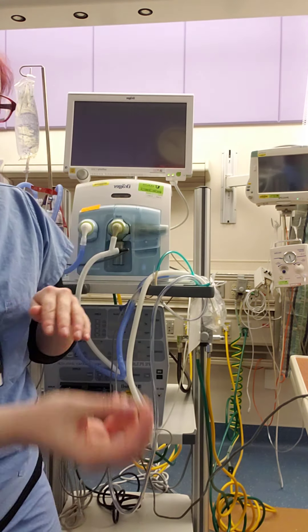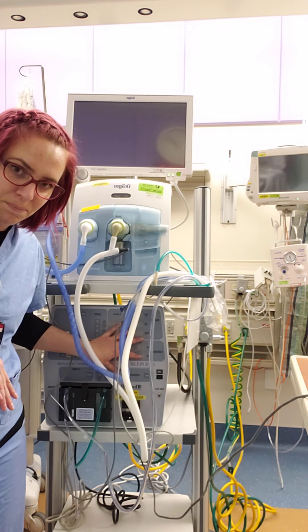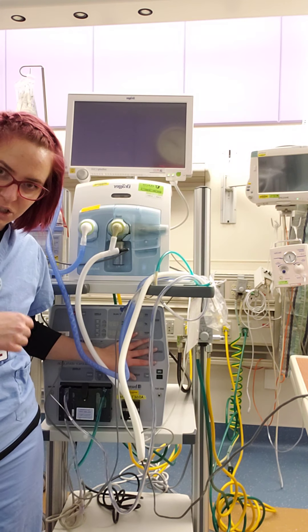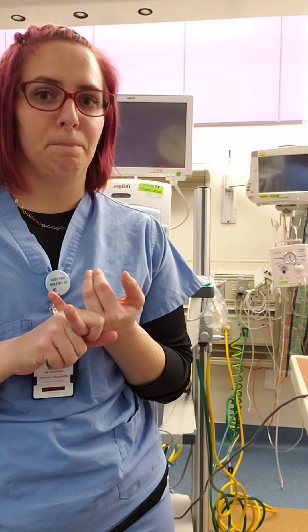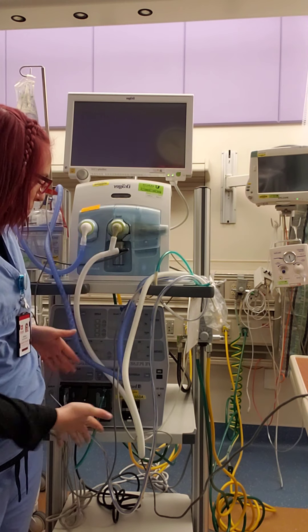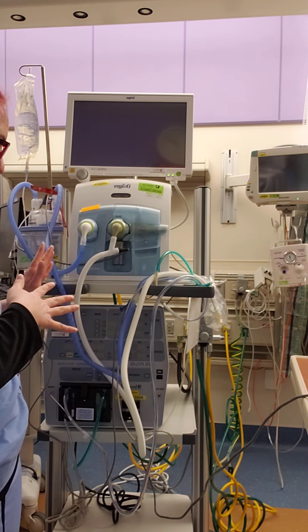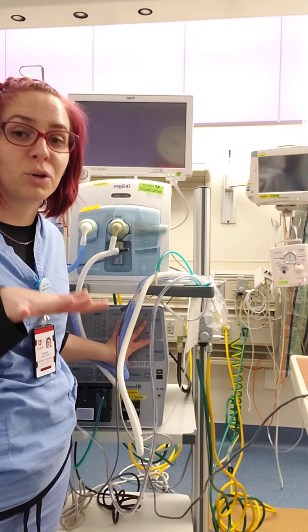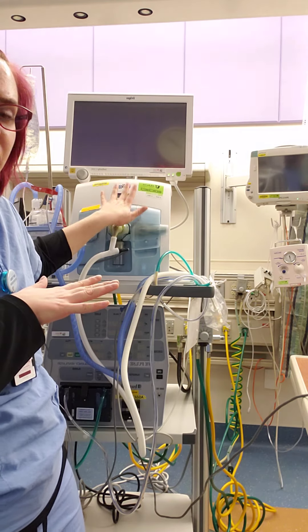First things first — the Bunnell jet ventilator is a type of high frequency ventilation that uses a passive exhalation. This makes it a great vent for situations such as air leaks, gentle ventilation, PIE, and secretion mobilization. One thing with the Bunnell ventilator is that it does not have a mean airway pressure or a PEEP — it will read the mean, but it does not have a baseline pressure for maintenance of alveolar recruitment.